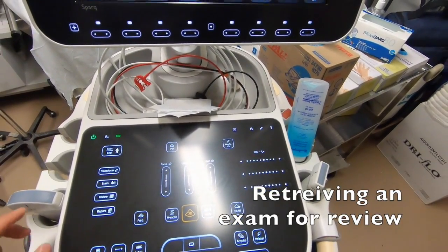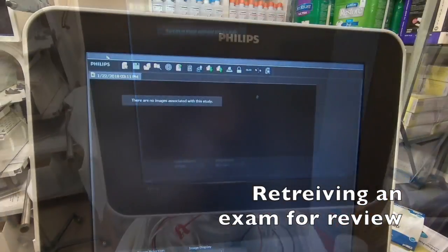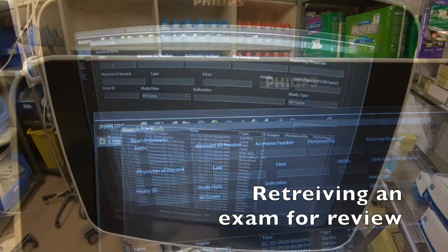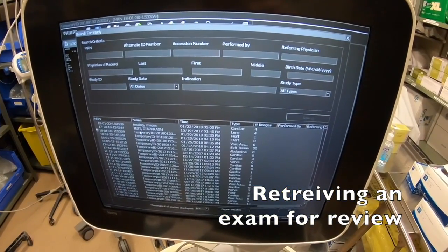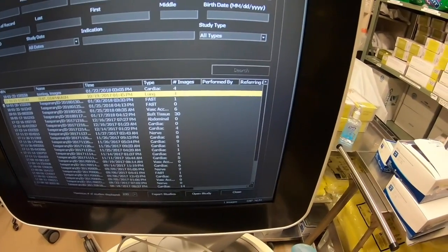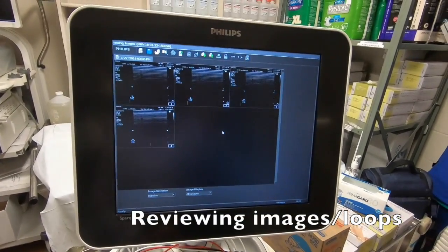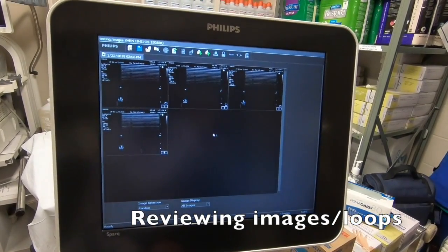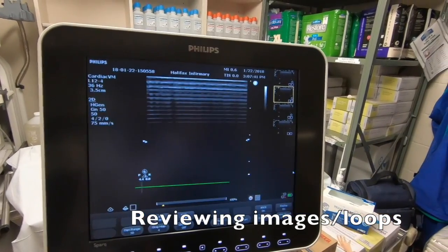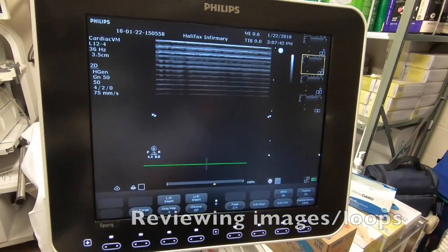When you are in live mode, simply enter Review. On the top left, you will see the button Search for Study. Locate your images. Once you have located your image, open your study, and you're presented with the loops and images that you have acquired. Simply double tap on one of them, and here you may review your loop.